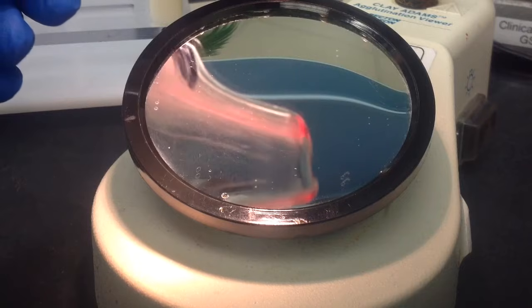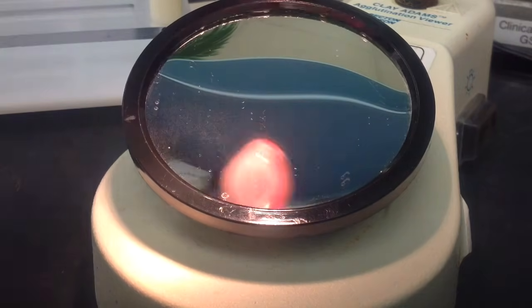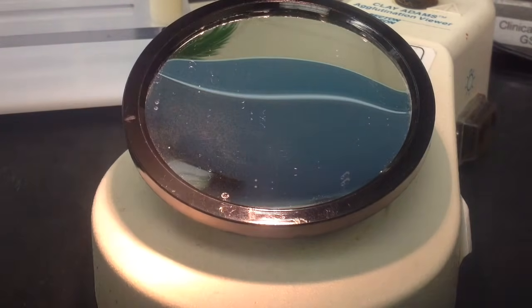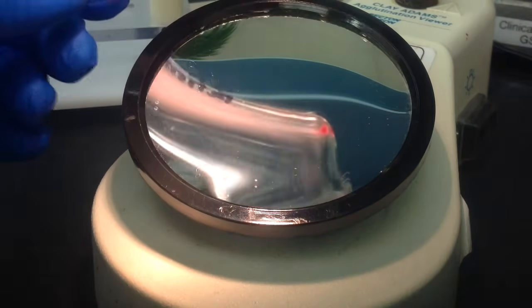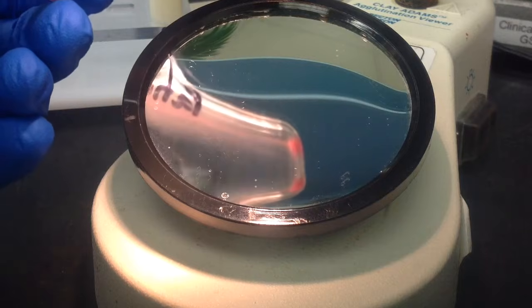Again, with the B, this is the forward that we're doing here. Once again, we're not getting any agglutination when we decant the cell button or resuspend it. You can see there's a zero in there. Sorry, this is a little awkward to see.